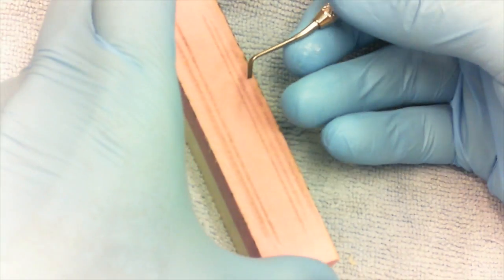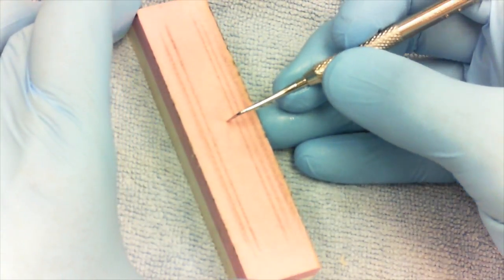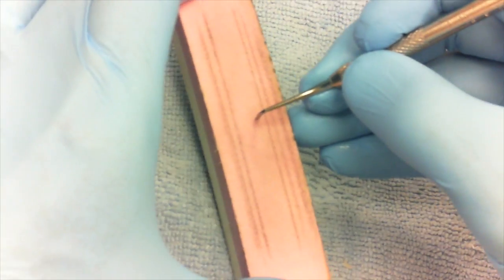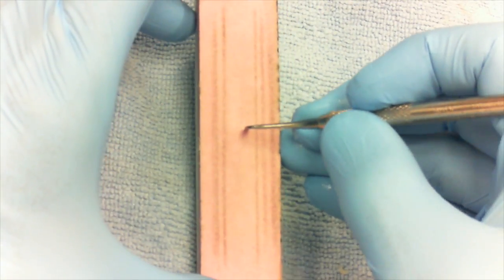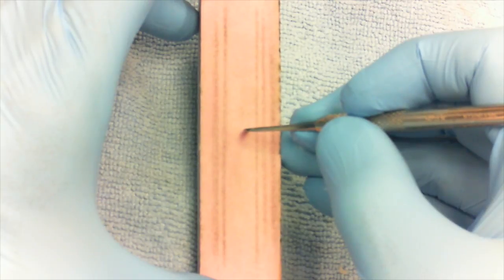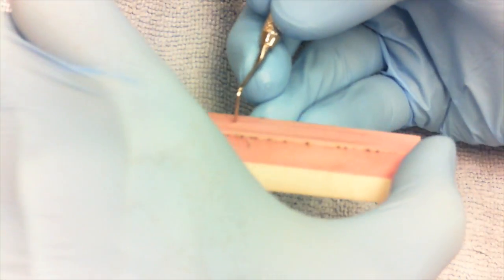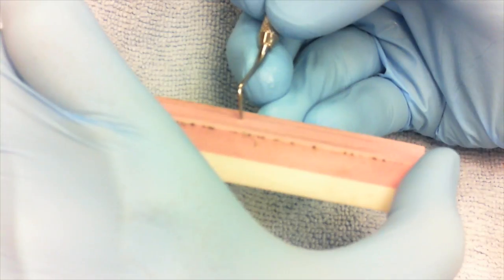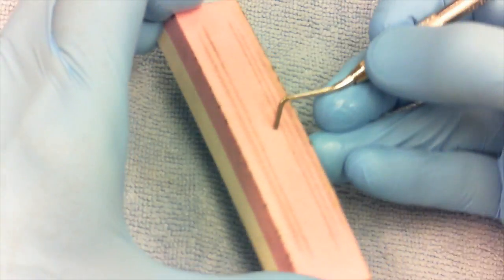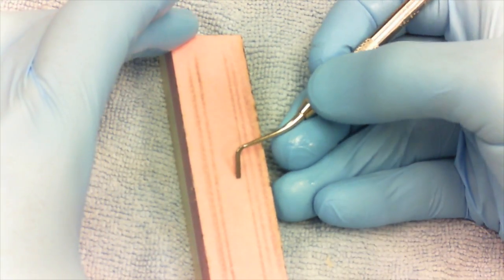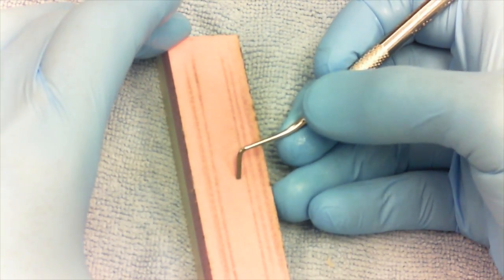So you're going to have the instrument straight up and down, perpendicular to the stone. Then you're going to tip the instrument over 45 degrees. That's the appropriate amount of tip. A 45-degree angle is what's required on dental bevels because the substrate is very hard.